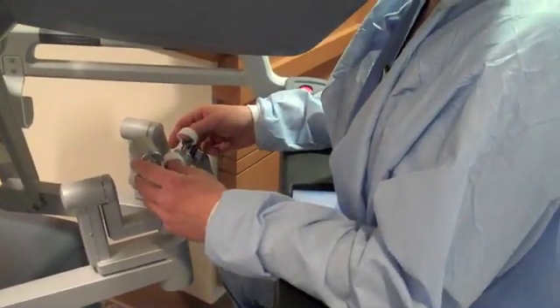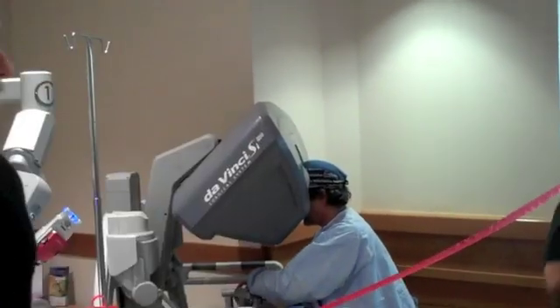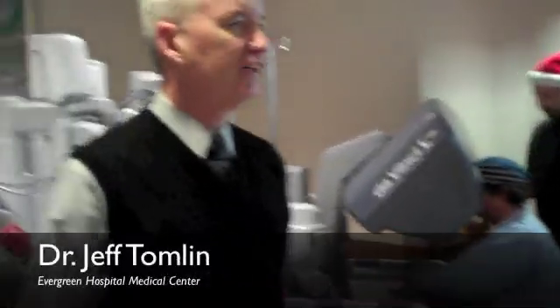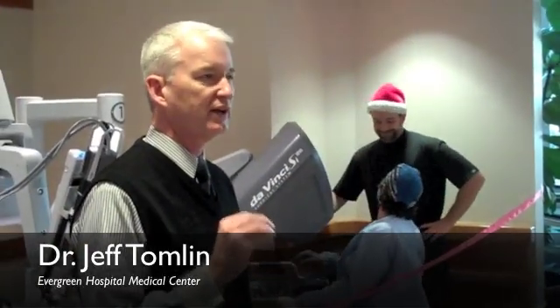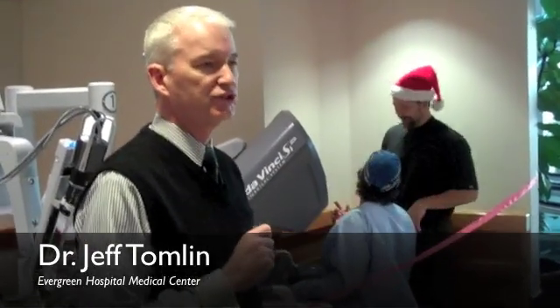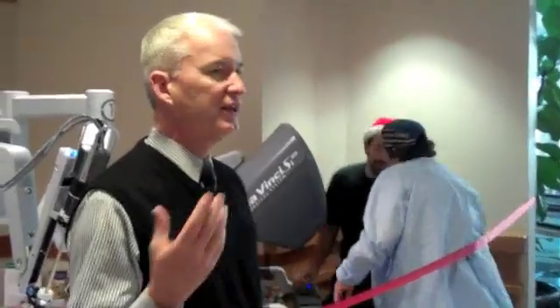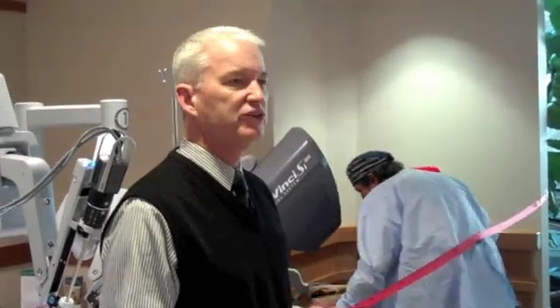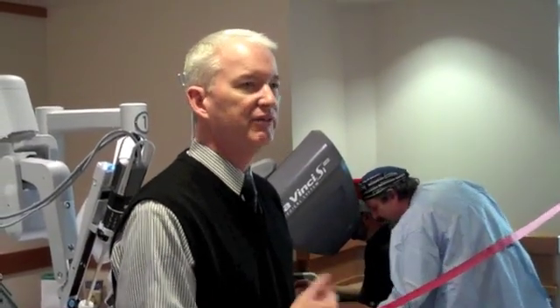Once he's in, then you can manipulate. Just a couple things about the DaVinci — this is really an advancement of our minimally invasive surgical skills, really following the technology in minimally invasive surgery. We're really excited about this because we've had to send our patient population downtown to other hospitals because we didn't have this particular device.